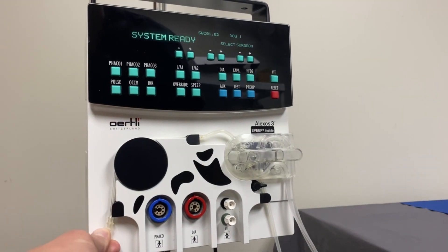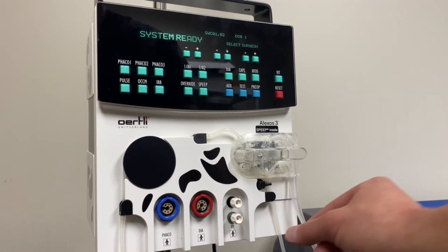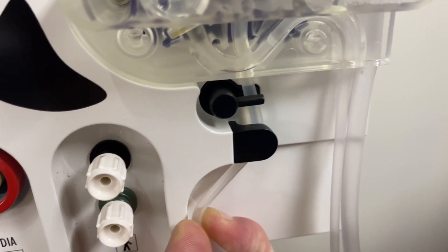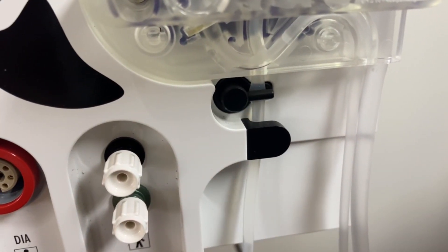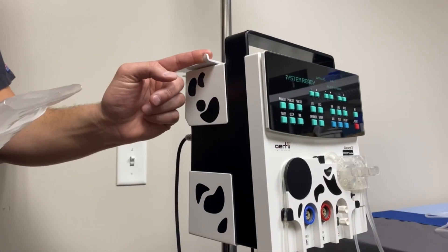Slightly pull the infusion line to the left towards and behind the irrigation valve. Once the tubing is in the correct position, the irrigation valve will activate, clamping the tube.